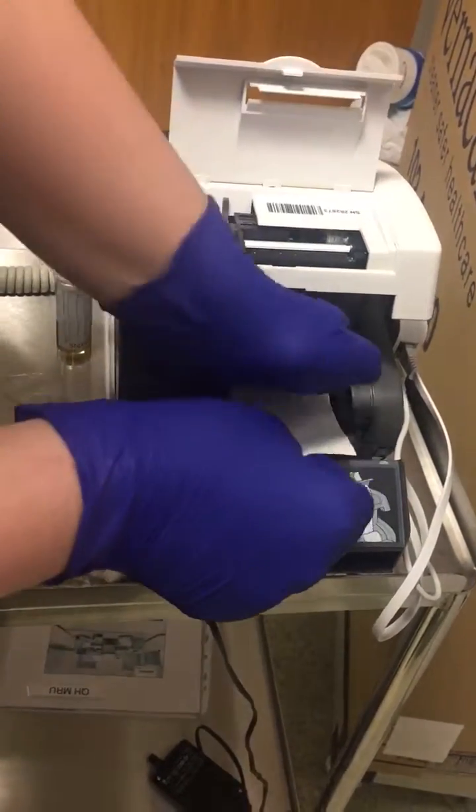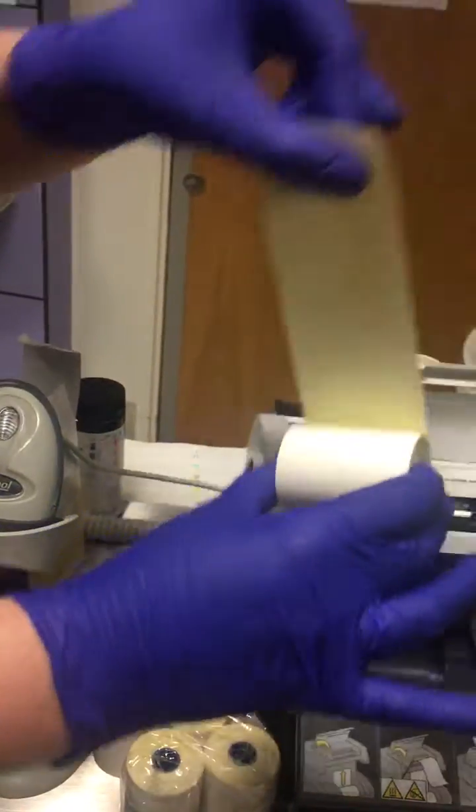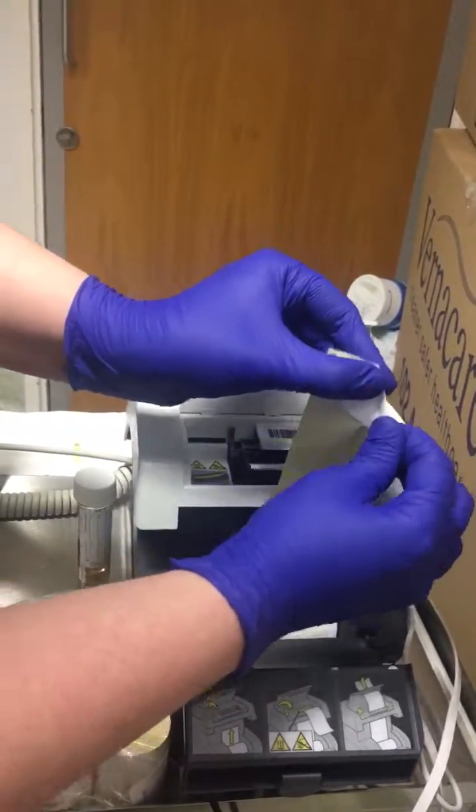The paper goes that way around, towards the back. This paper comes from pharmacy if you need it. What you do is fold the top into a point.